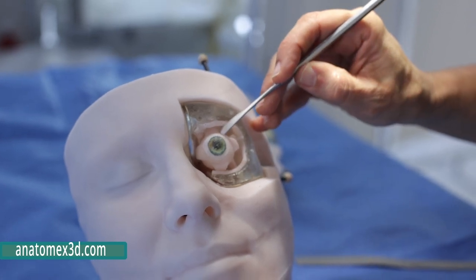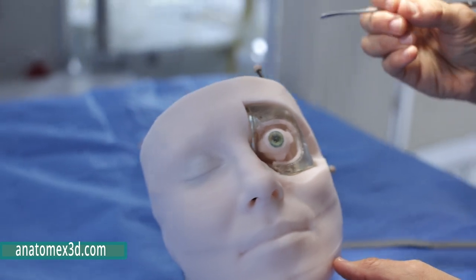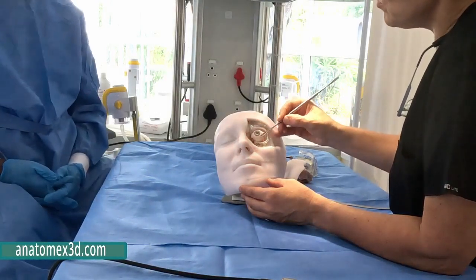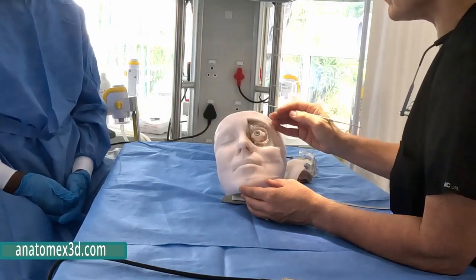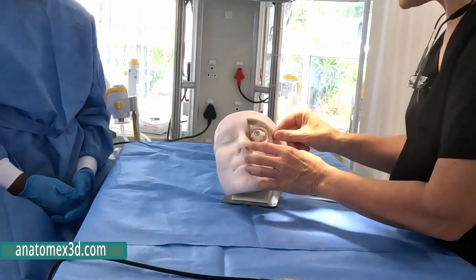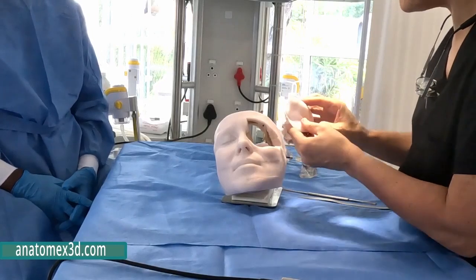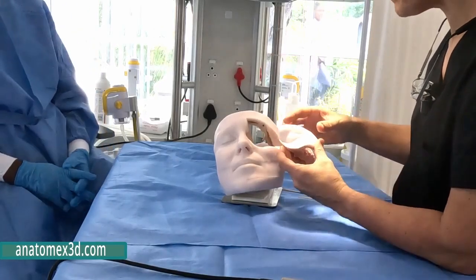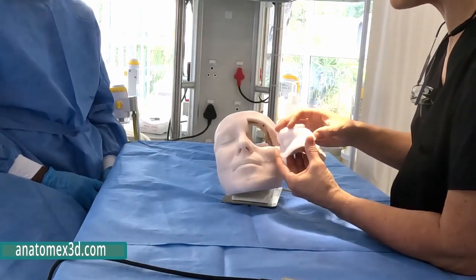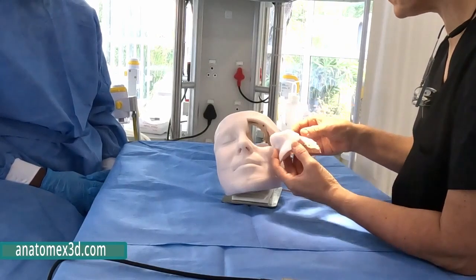So in this model, we will also demonstrate all the different arteries and nerves, the important ones, where they run in relation to your rectus muscle, so that if you do intraconal surgery, it helps you understand the anatomy a little bit better. So the next step is to really go to real life surgery, where we have this model. It consists of the skin and the subcutaneous tissue, which is very lifelike, and similar to a real patient's skin and the real thickness that you would experience.